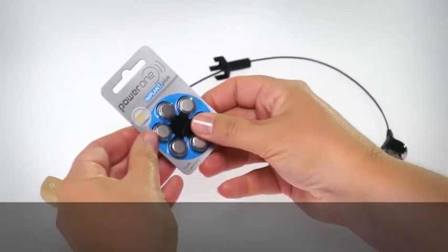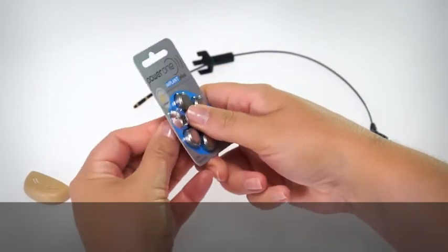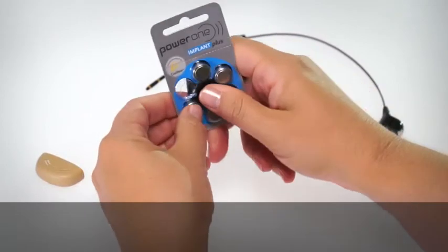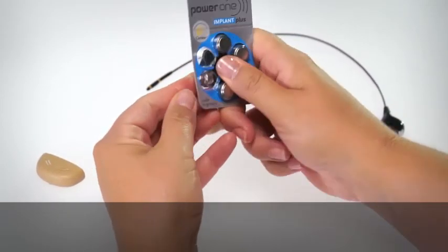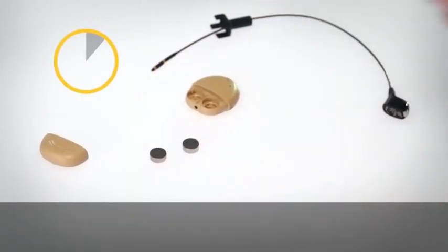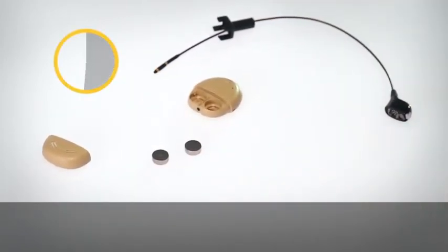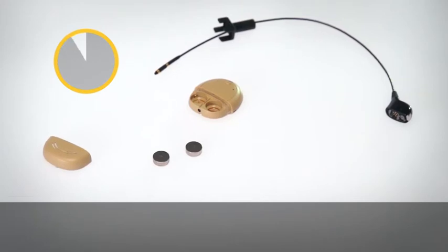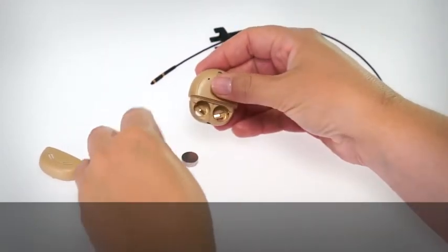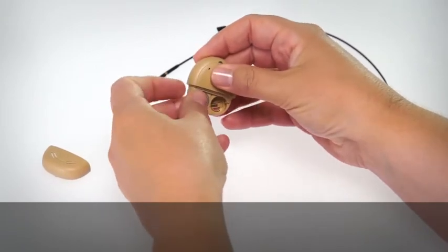Remove the new batteries from the packet and let them stand for a few seconds. Insert the batteries into the holder with the flat side facing up.